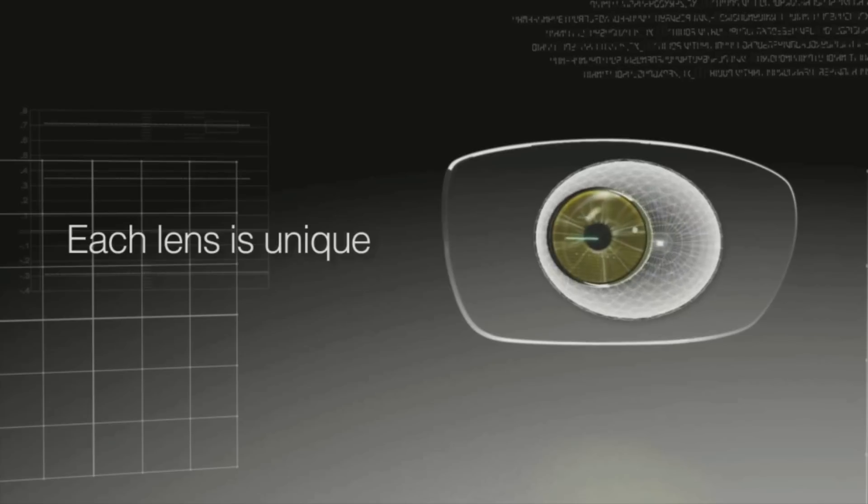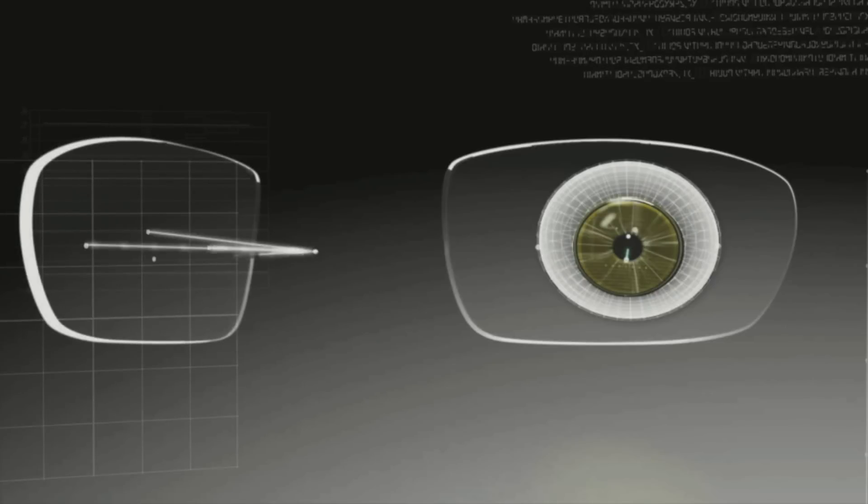When directing the eye to view any given object, all fixation axes will pass through the eye rotation center and intersect the lens in precise areas.